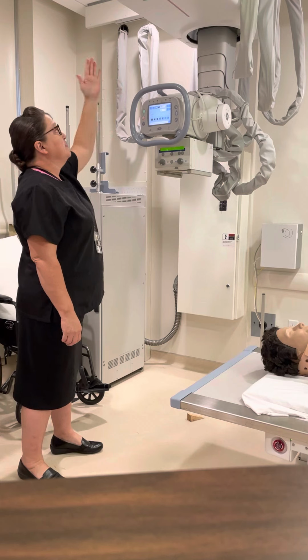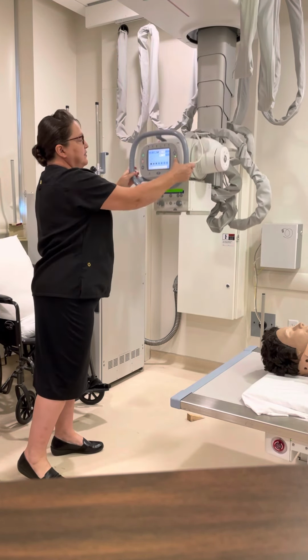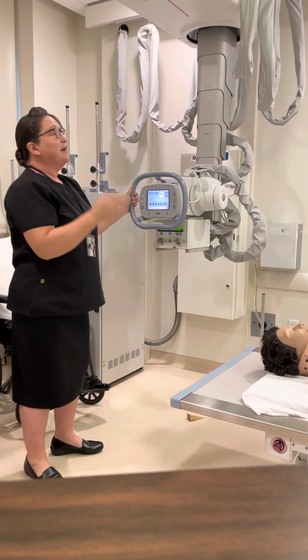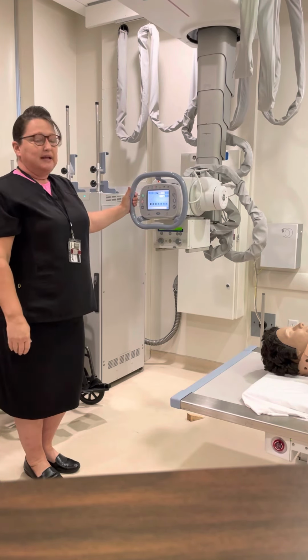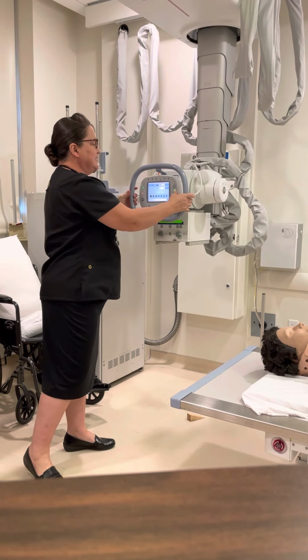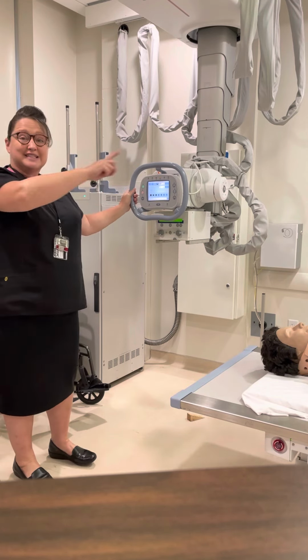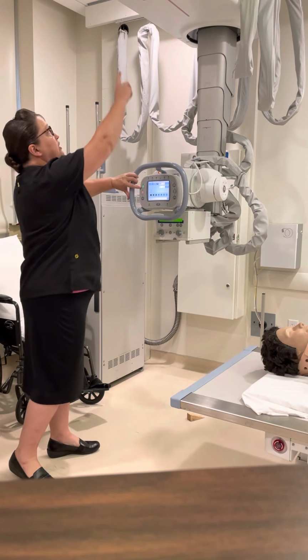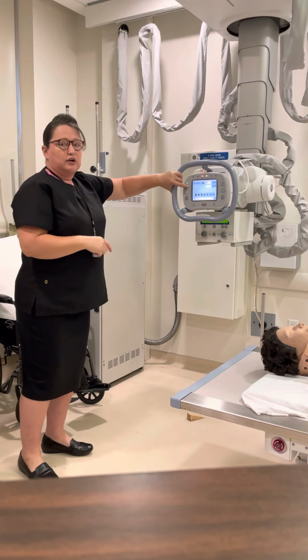So if I want to move it up or down, there's a blue stripe on the front. I can use the blue button or gray button. People see that as different colors a little bit. But to move it up or down, you use the blue or gray button on the right hand side. To move it left to right or along the horizon line, then we use the green, which coordinates with the green stripe. And we're going to move it across the room.